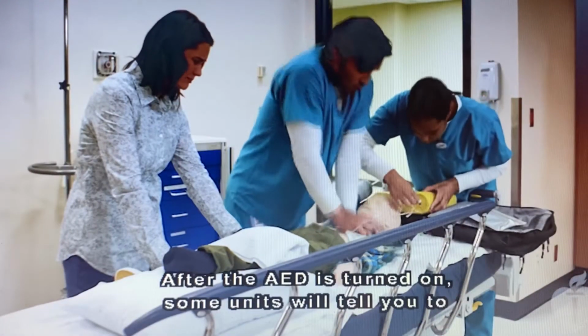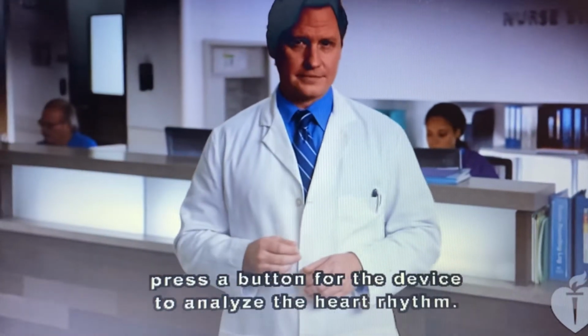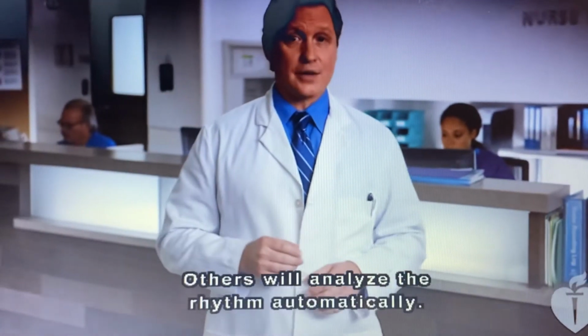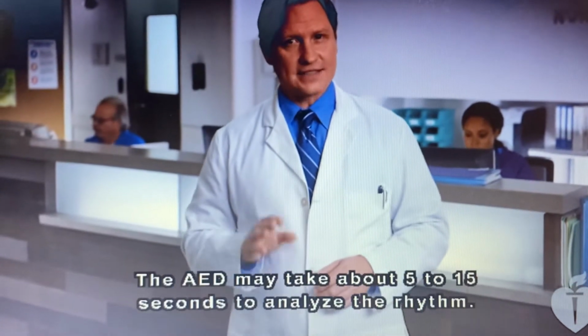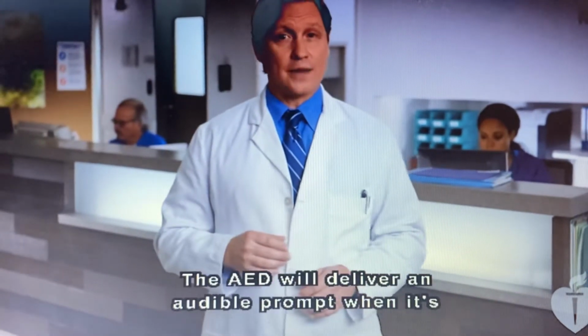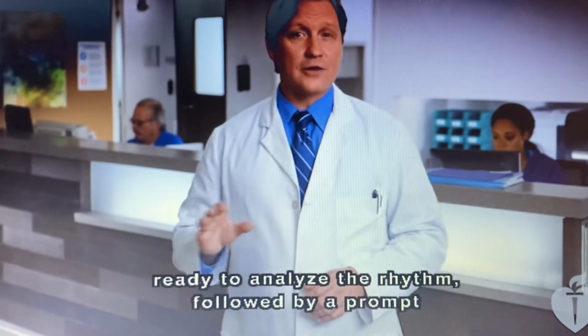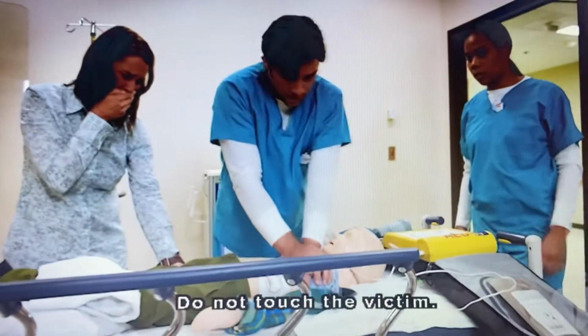After the AED is turned on, some units will tell you to press a button for the device to analyze the heart rhythm. Others will analyze the rhythm automatically. The AED may take about 5 to 15 seconds to analyze the rhythm. The AED will deliver an audible prompt when it's ready to analyze the rhythm, followed by a prompt to clear the victim. Analyzing rhythm. Do not touch the victim.